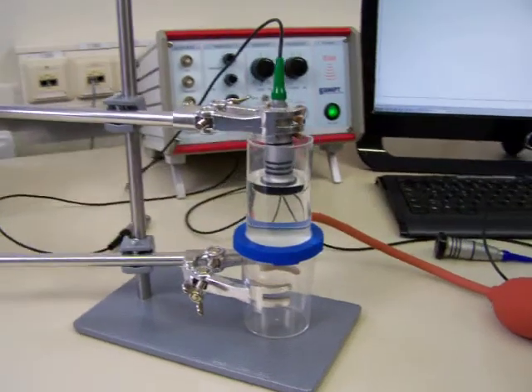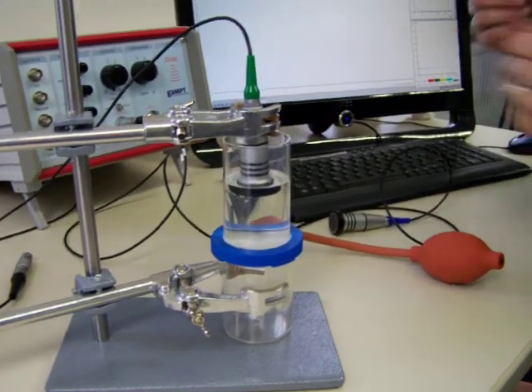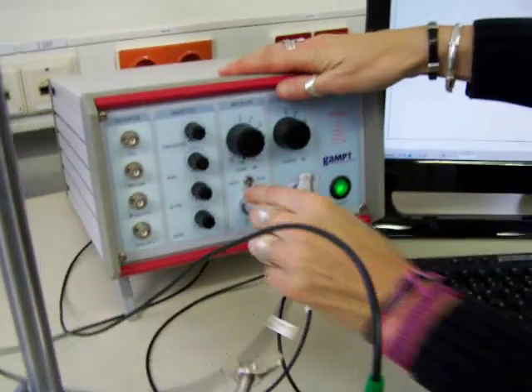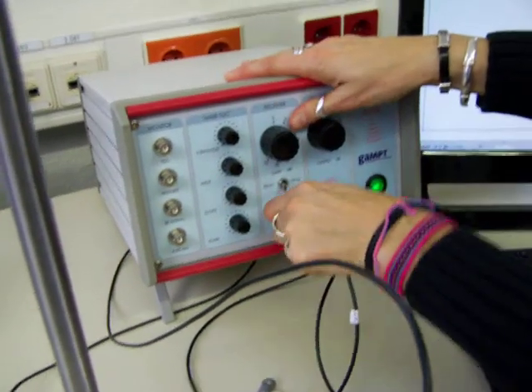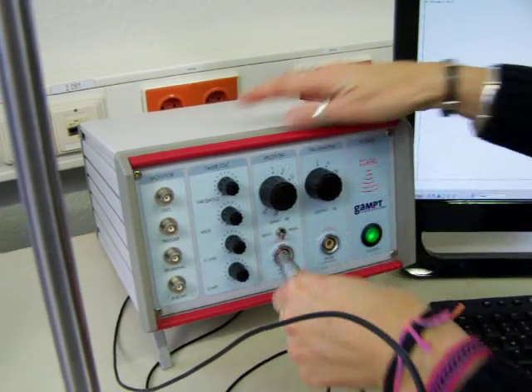With our heart model, we want to simulate the heartbeat, heart rate, and all the functions of the heart. Therefore, we use a four megahertz probe. In switching probes, you unplug one and just pull it out—there's a little red dot.